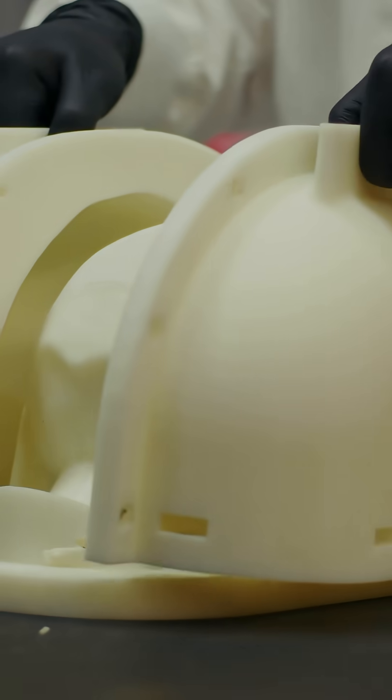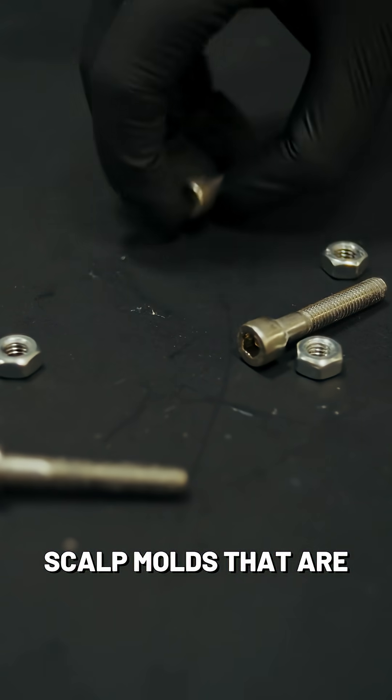So step one, we'd start with the scalp. We have these custom scalp molds that are patient specific.